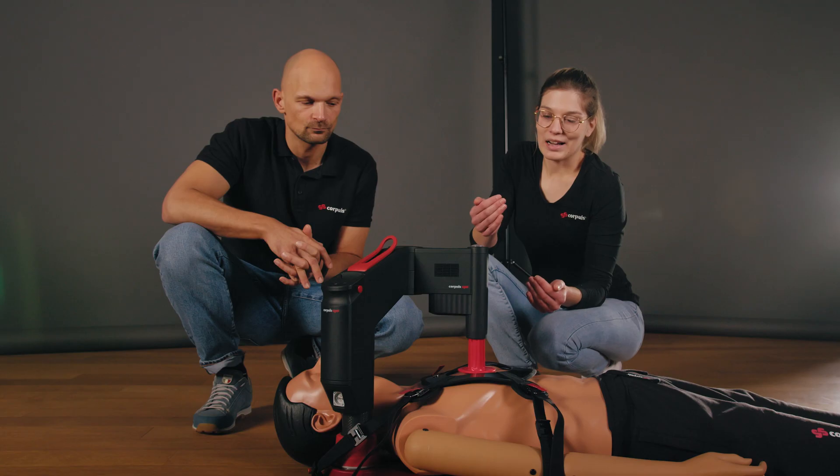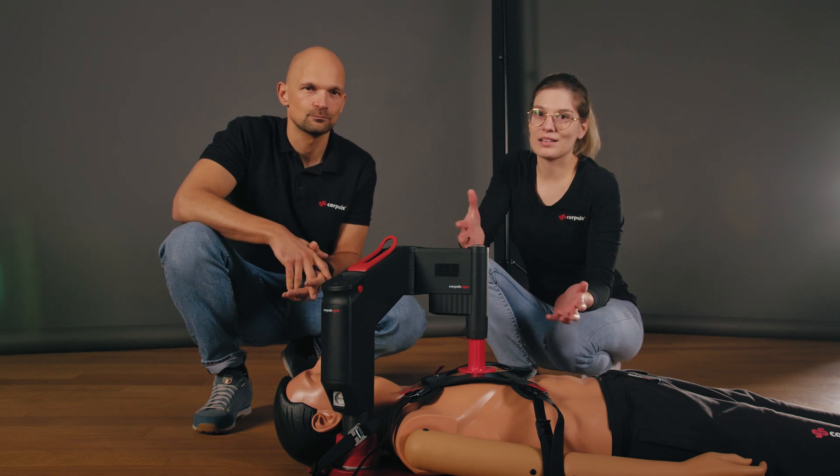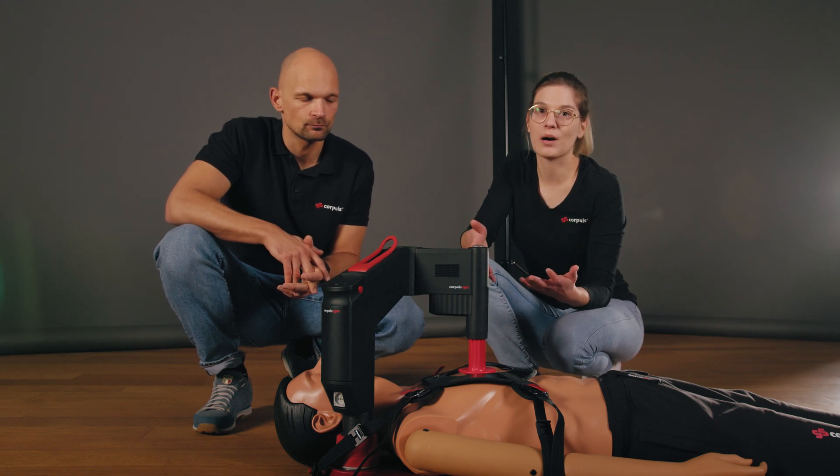A yellow alarm indicates a call to action that needs to be worked on as quickly as possible before the LED changes to a red alarm, meaning you really need to act now. Third is turquoise, however this is rather irrelevant during use as it usually relates to the memory card and does not directly affect therapy — just check that after the mission.